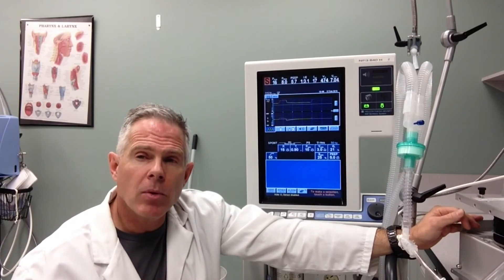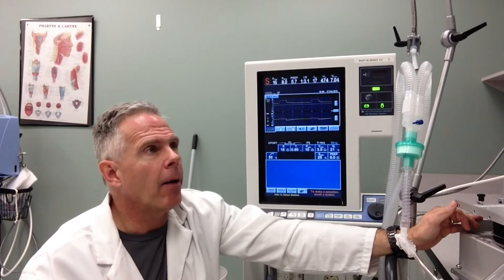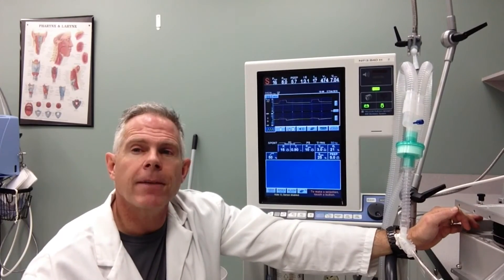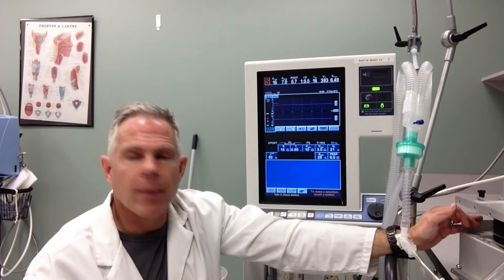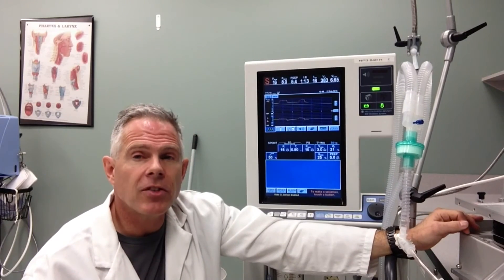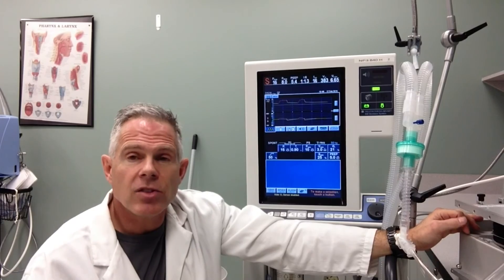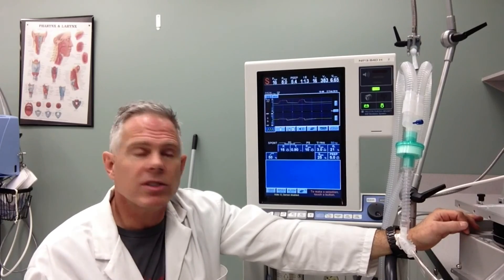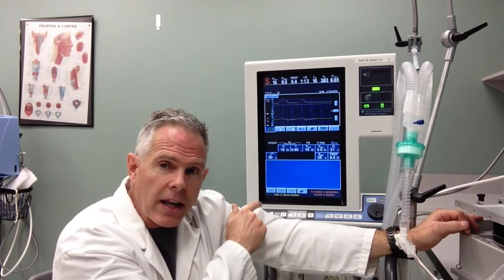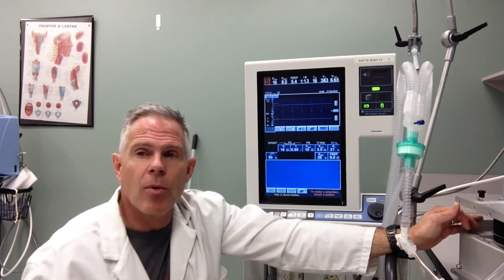A lot of people will tell you that they adjust it to patient comfort. I'm not sure exactly what that looks like, but maybe you can tell me after you've seen it on your patients at the bedside. This is Alan Prost — thank you very much — talking about e-sensitivity and pressure support.